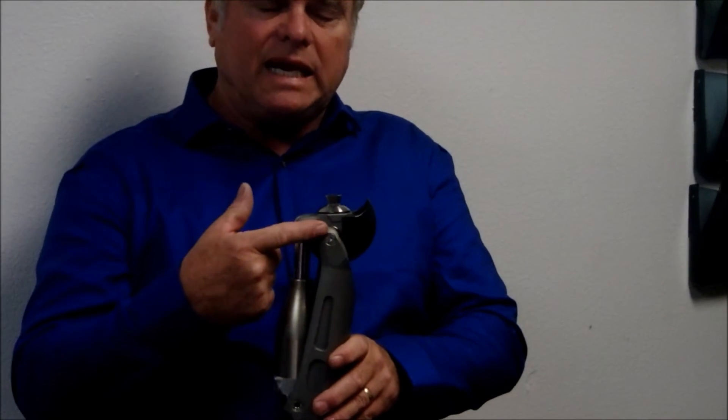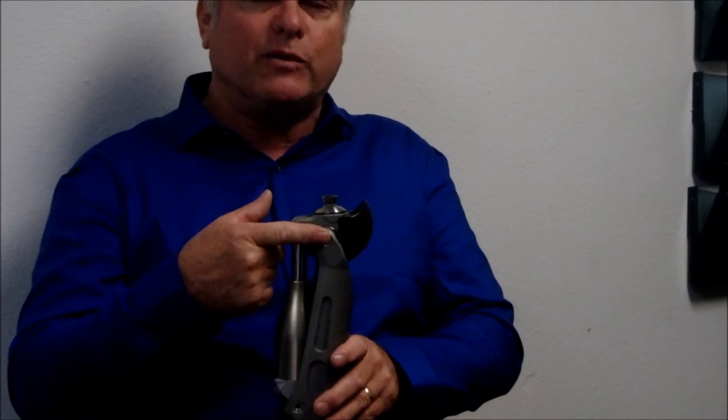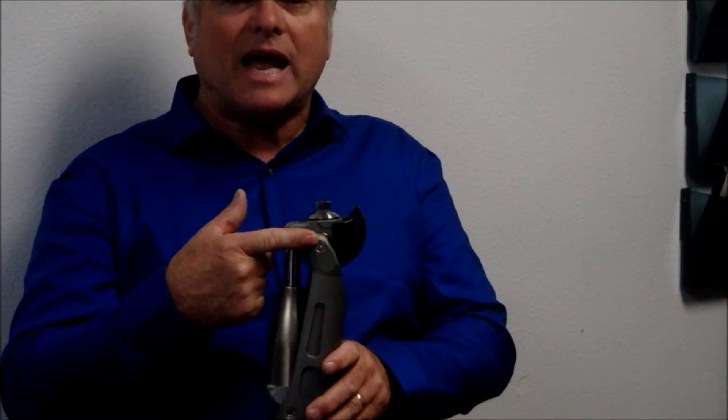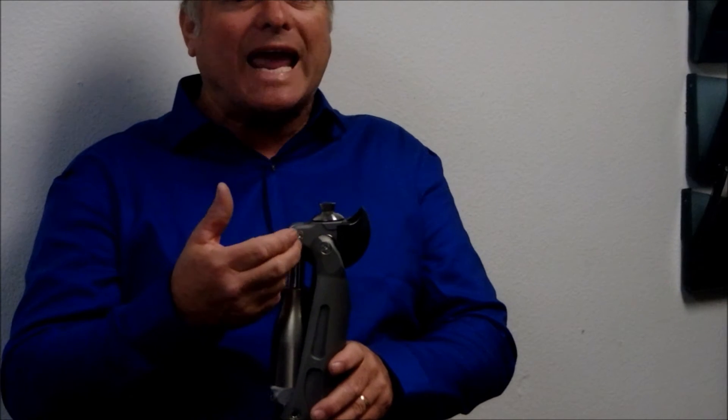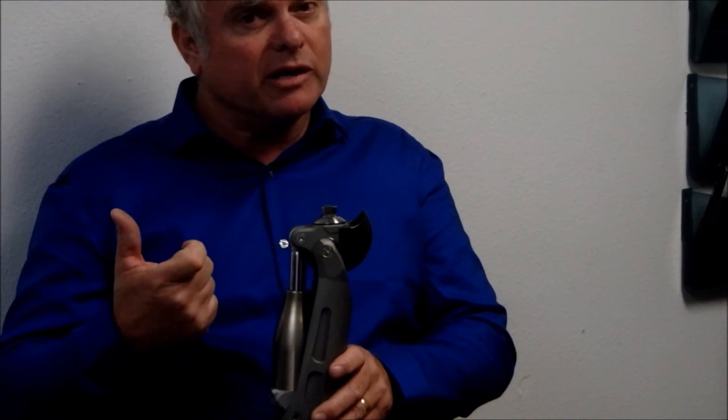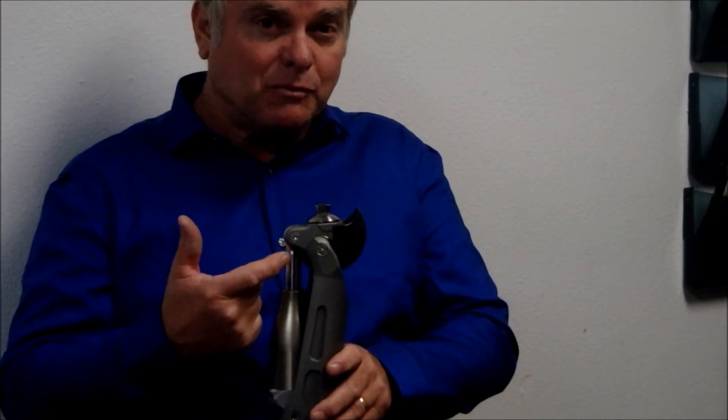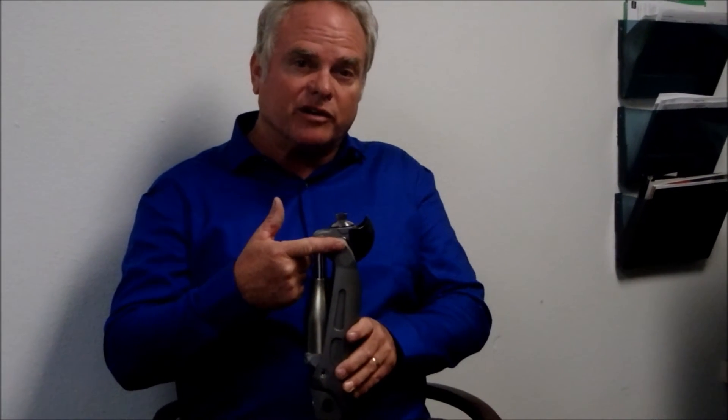The more this knee goes towards 0, the more stance flexion action you'll get at mid stance. So, if you want a very stable knee, bring it posterior. If you want a very active patient that controls stance flexion, bring it anterior.